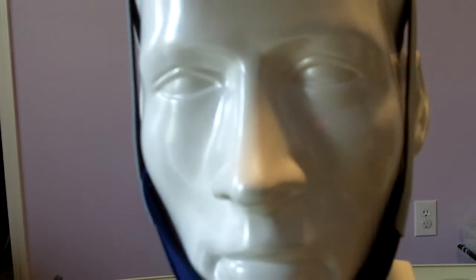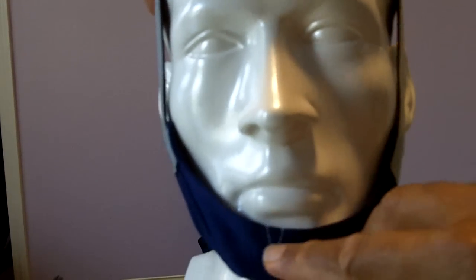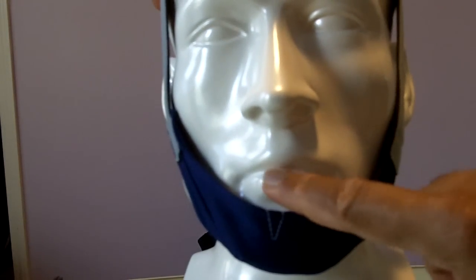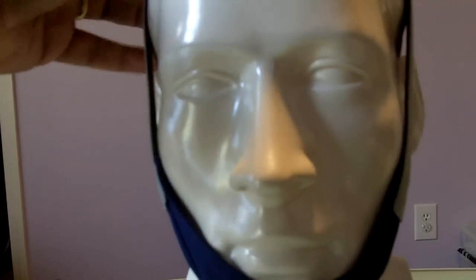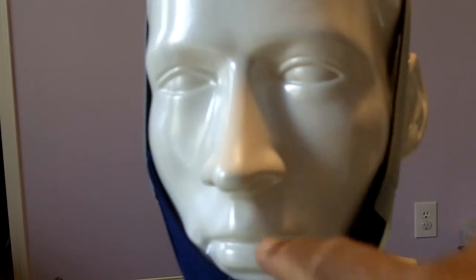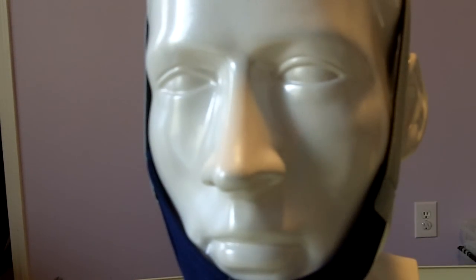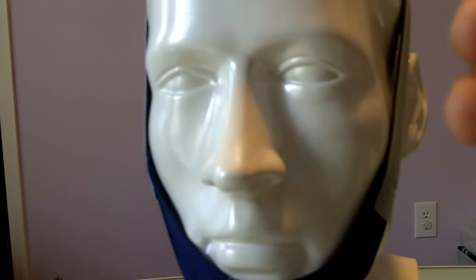The other thing is, please don't have this cover your mouth totally. Here's another thing. If you find that the chin strap is coming forward slightly, one thing you can do is always put your chin strap on first.